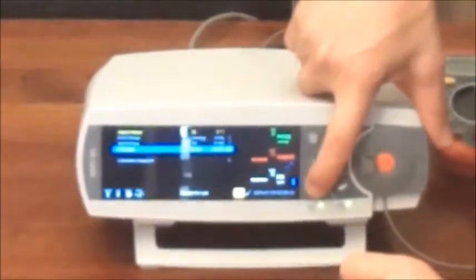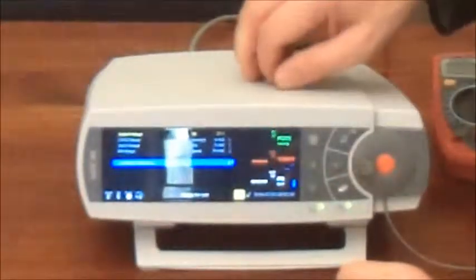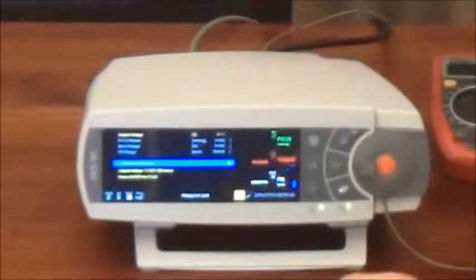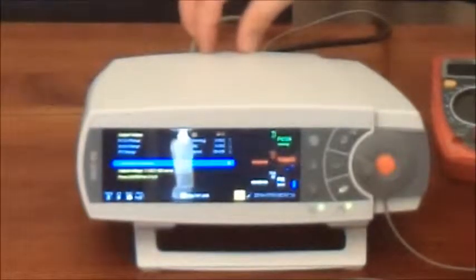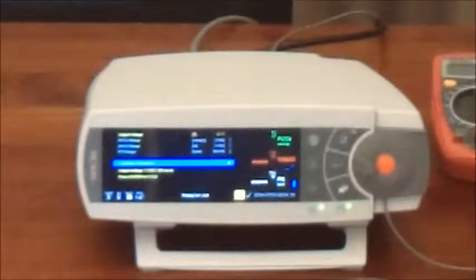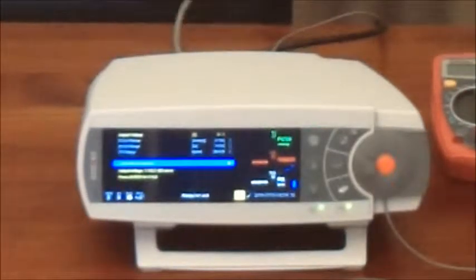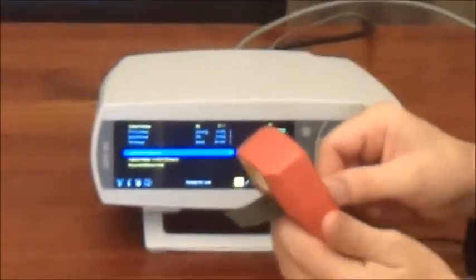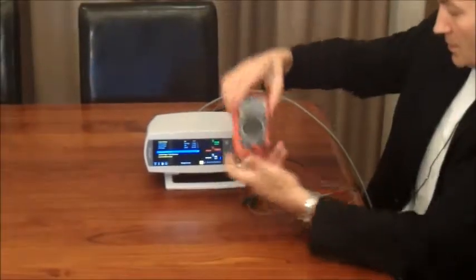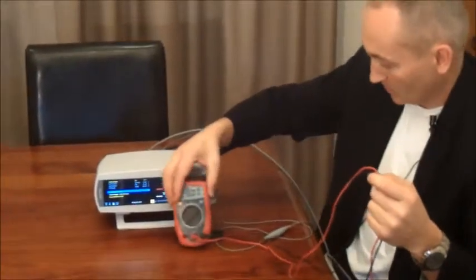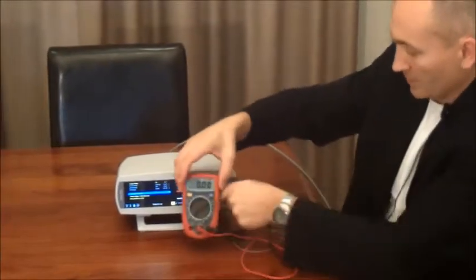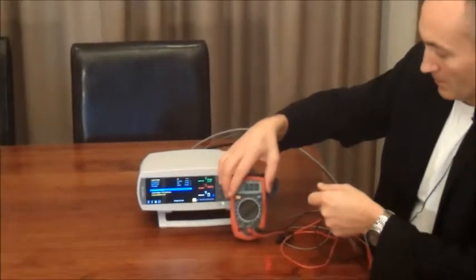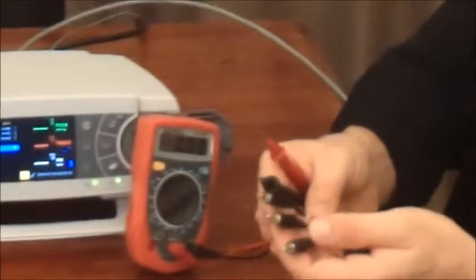Then we go down all the way to the calibration sequence. Now once we push enter on the calibration sequence, the machine is going to put one volt out of each pin at the back through the cable to your polysomnography machine. To illustrate that, I've got a multimeter here; I'm going to put it on maximum 20 volts so that we can see what's going on. We're going to make that available to the camera by leaning it up against the device.